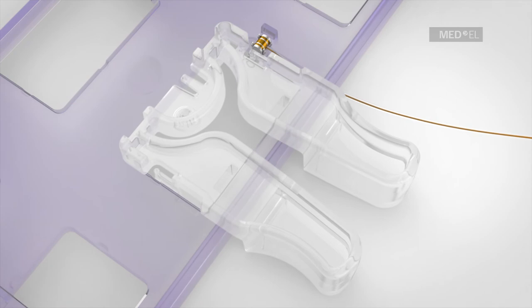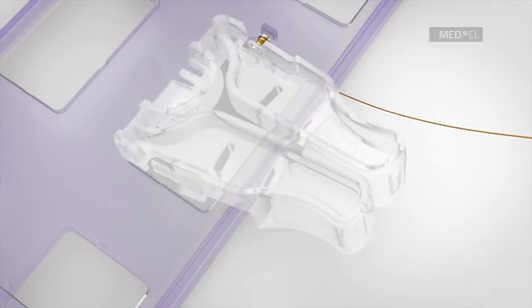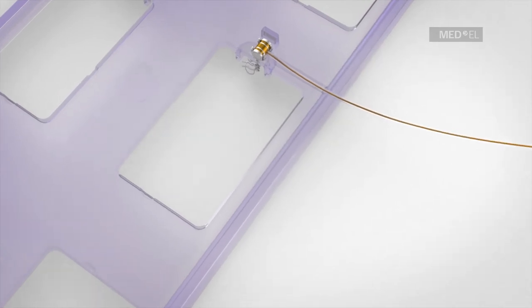the two handles of the retainer are squeezed together and the clip is tilted and carefully removed.